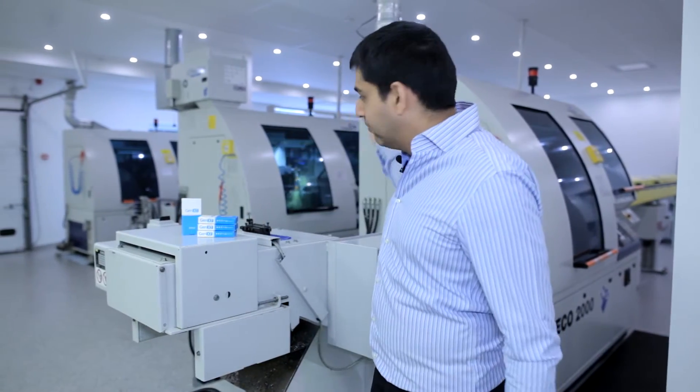As you can see behind, we have the latest CNC machines. We will later have a tour of the sterile and the quality control procedures done by this company to assure you the most high quality of implants.